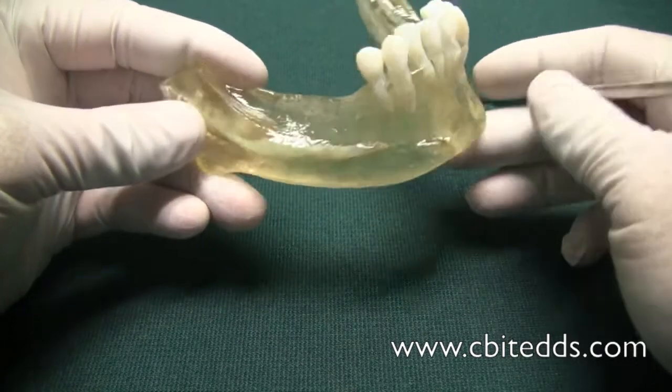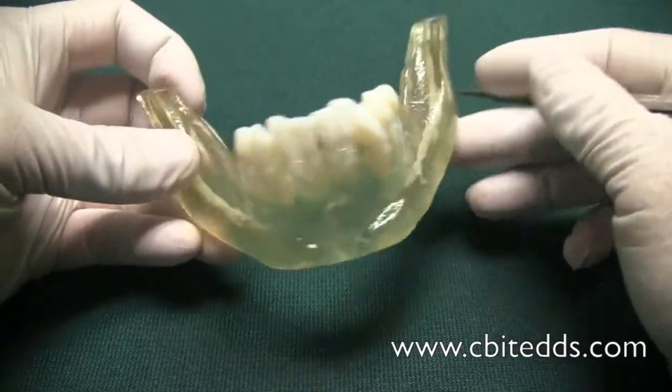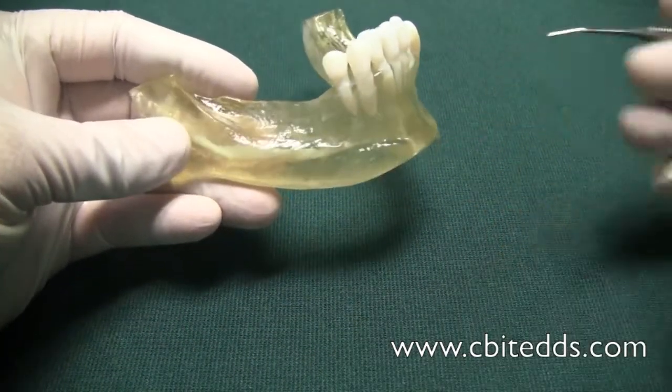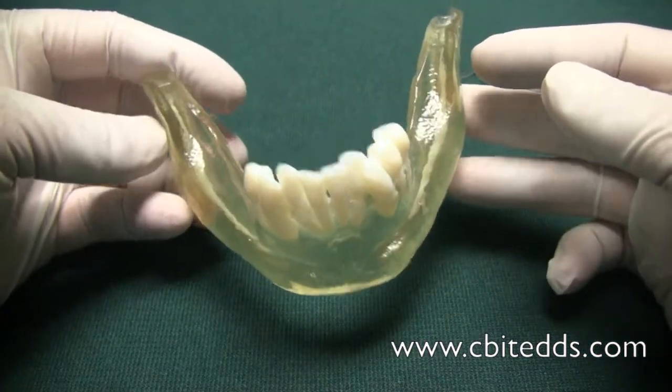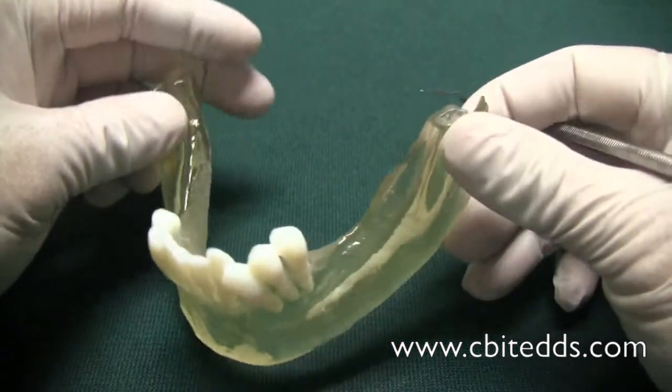This is something that's very important for the dentist to see. A 3D model will always help the doctor in determining how to place an implant in difficult cases, and this one looks somewhat difficult here.